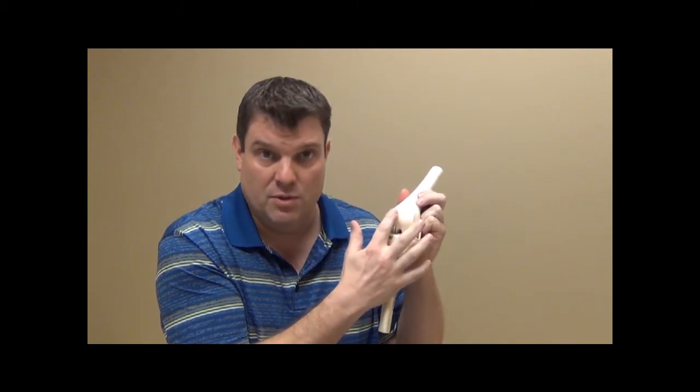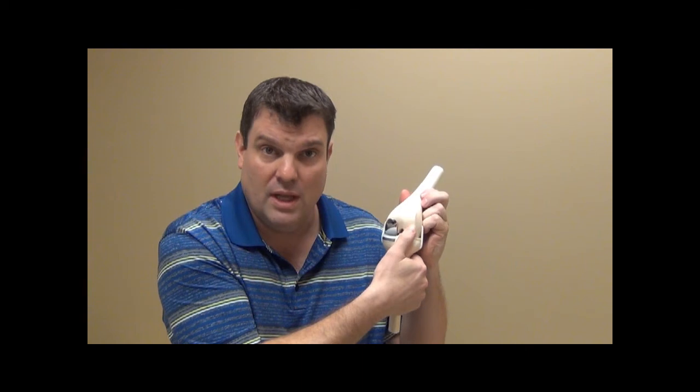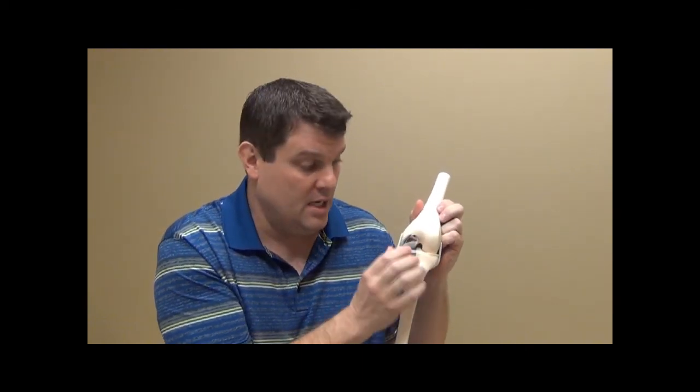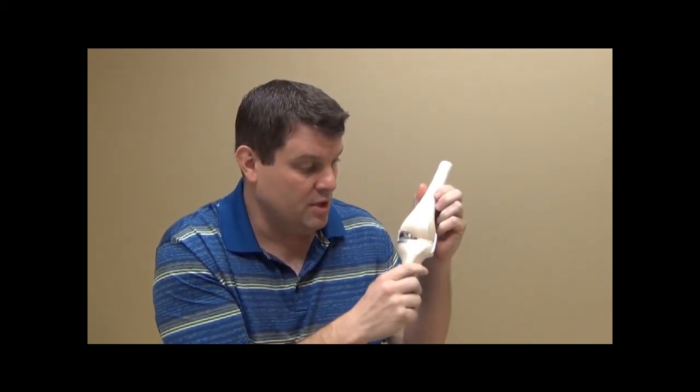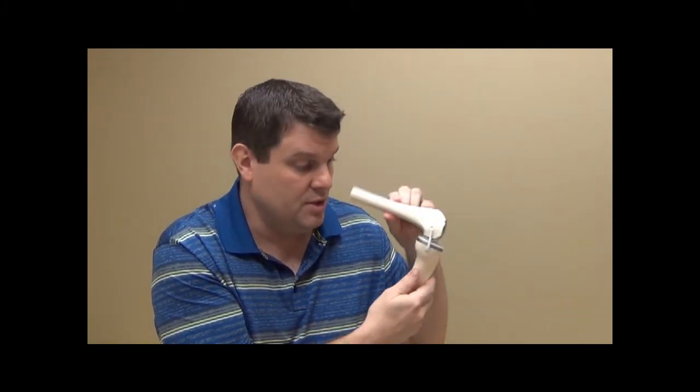We've saved your own patellofemoral joint, the part underneath the kneecap, and we've saved your own lateral compartment. And we've only resurfaced the wear. So this person, this model, had arthritis that was very bad in a medial compartment. Now it's resurfaced.